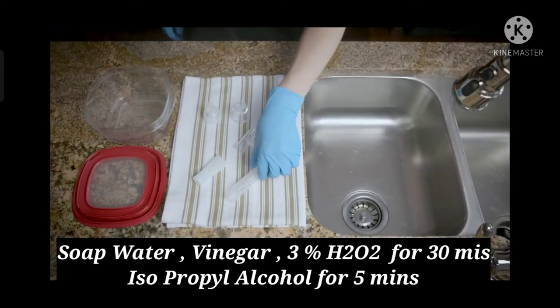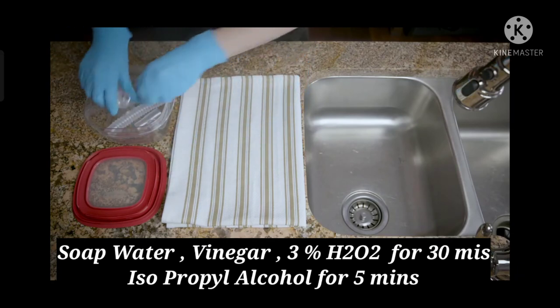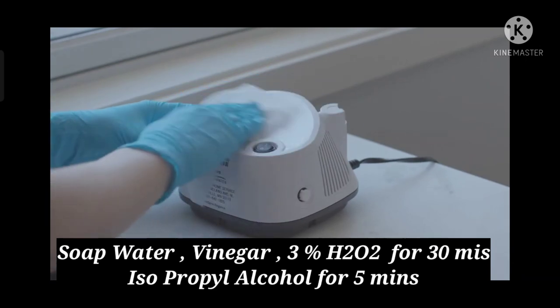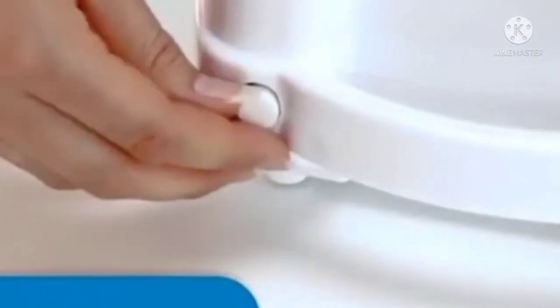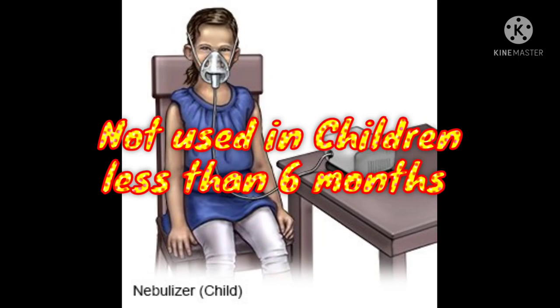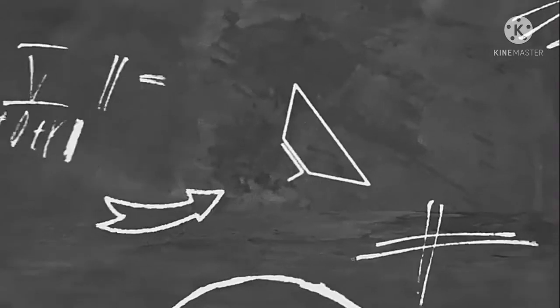If using 70% isopropyl alcohol, we should soak it for 5 minutes, then wash and dry it. We can also clean the nebulizer machine using paper tissues. We should change the filters on a regular basis. Most importantly, we should not use the nebulizer in children less than six months of age.